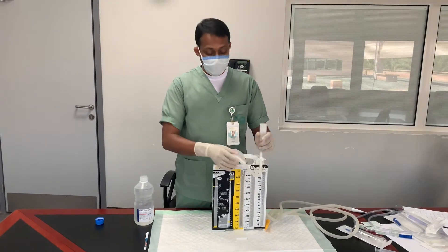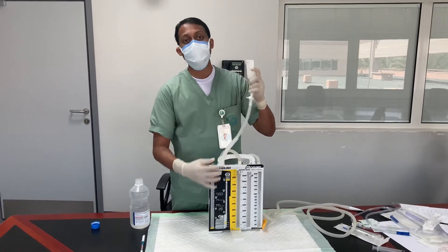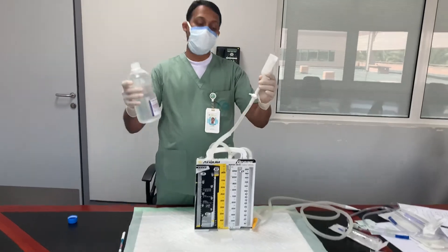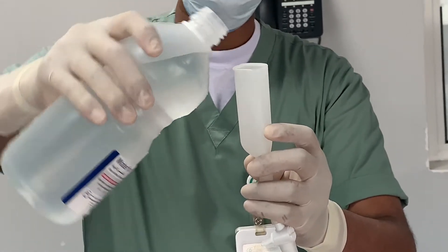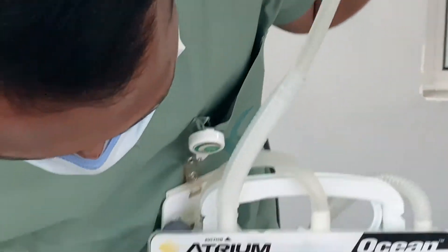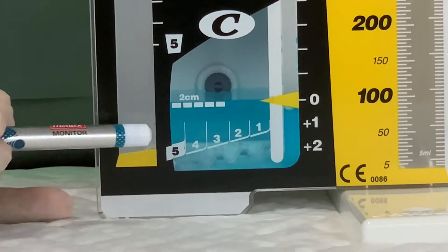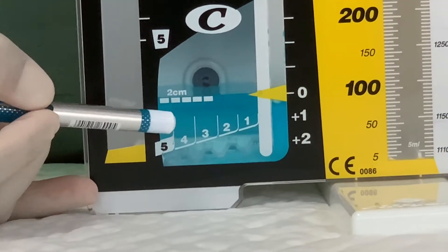For demonstration, I will now show how to prepare the water seal chamber. When you open the drainage system, you will find a funnel connected to a tube that goes to the water seal chamber. You take distilled water or irrigation water, pour it into the funnel until it fills, then open the valve so the water flows from the funnel into the water seal chamber. The amount in the funnel is exactly sufficient to reach the two-centimeter level. There is already a line drawn at two centimeters in this chamber.